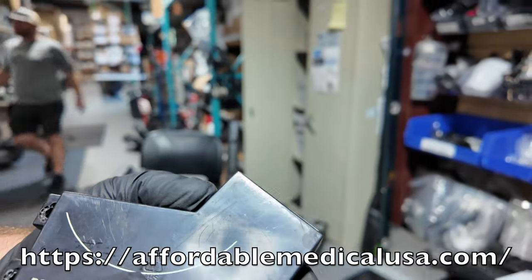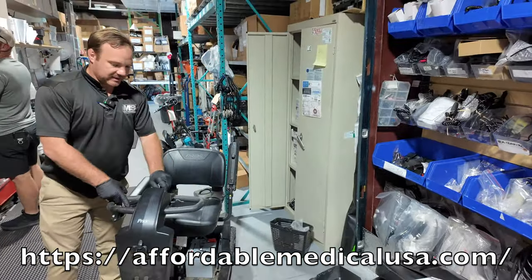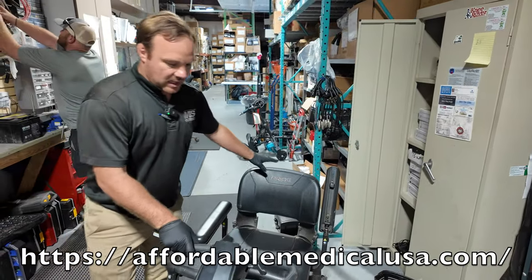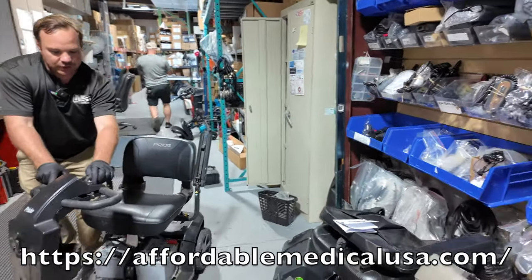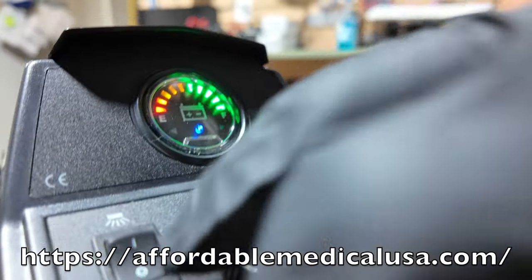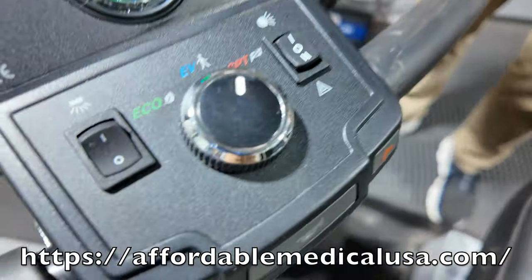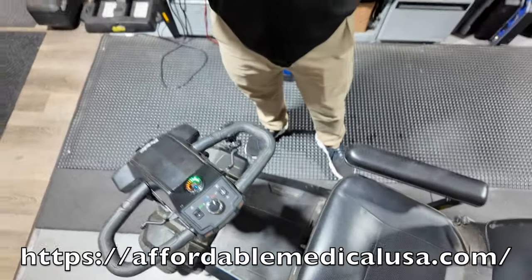This needs to be replaced. If your scooter is riding at one speed — like it's stuck in slow speed because it thinks it's always turning left or right — and you change it from ECO to EV and it doesn't change speed, or from EV to SPT and it still drives the same speed, more than likely you have two things wrong: this board has gone bad.